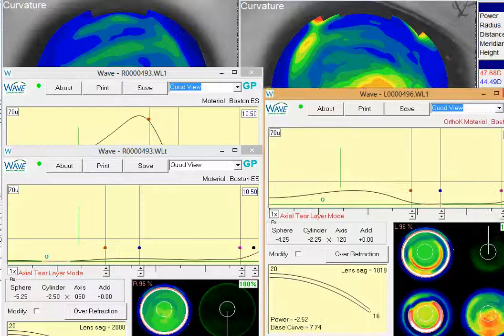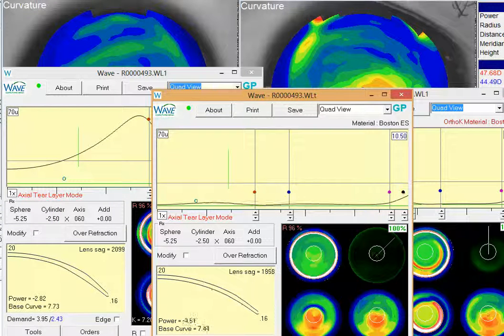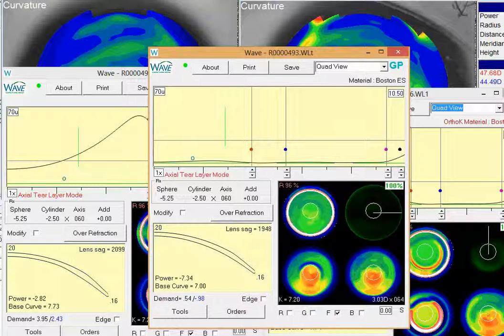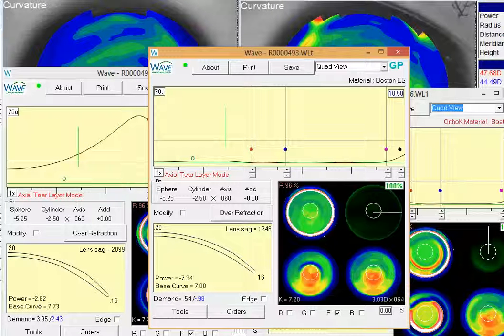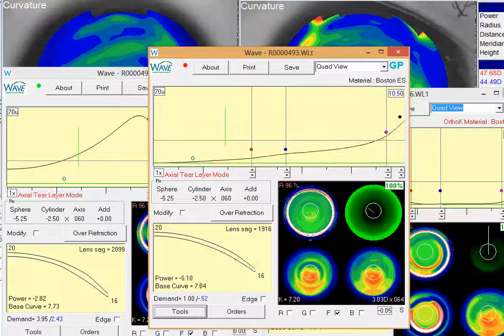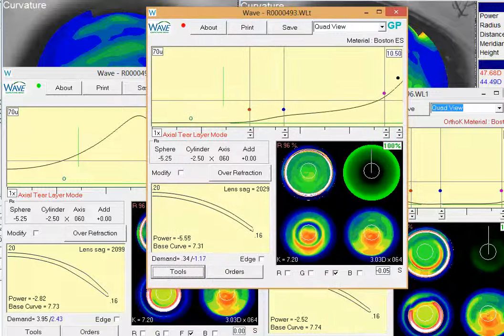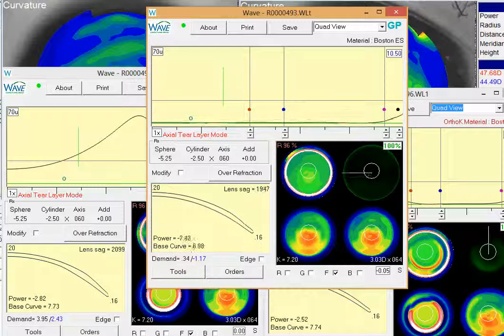I didn't mock one up here, but if we look back at that right lens, you can see how that helps out. Another thing you can do to work on loosening or flattening that a little bit, you can always use this little aspheric tool down here if you want. And if you remember, if you click on that, just add a little asphericity, that's even going to make that lens look probably even more like your topography. So now you have almost a perfect match on that back surface of the lens.